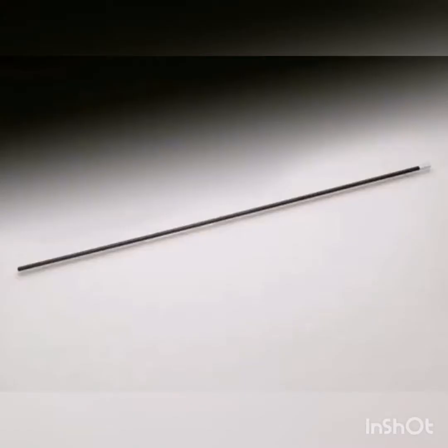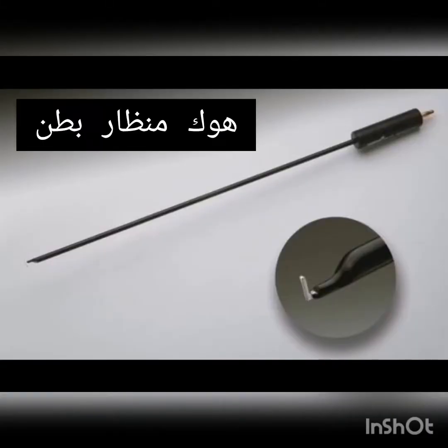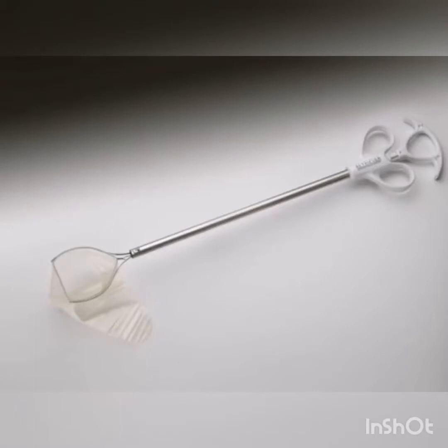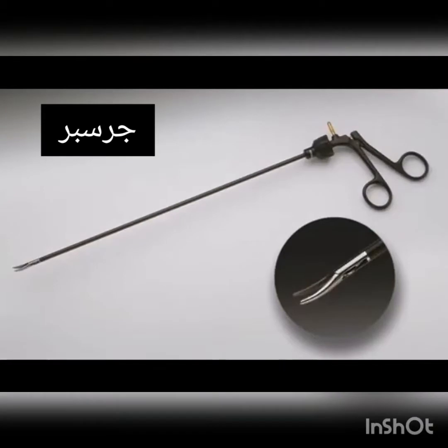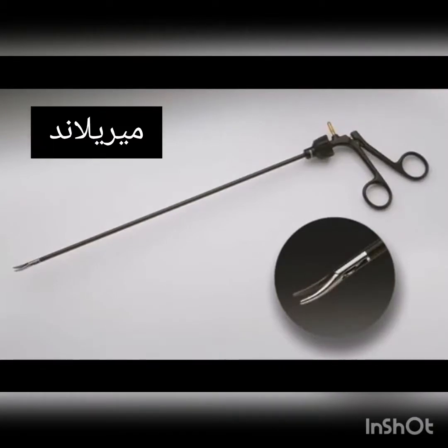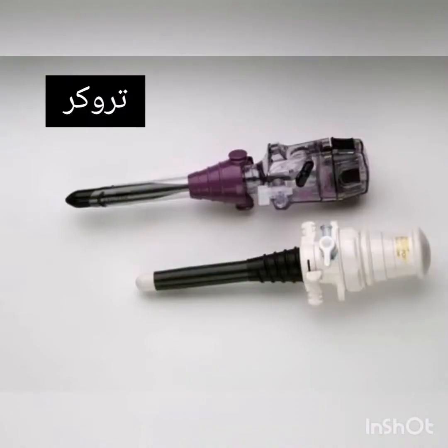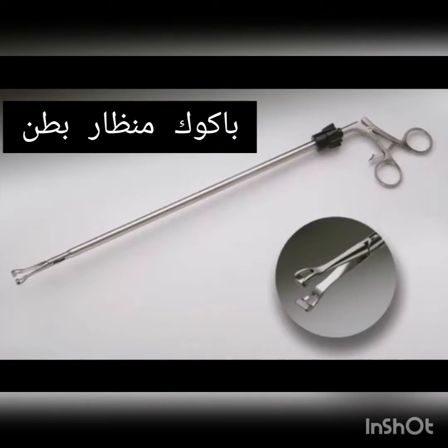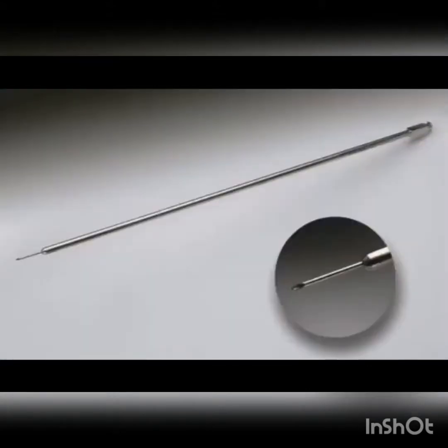Endokittner. L-Hook. J-Hook. Endokittner L-Hook. Blunt Dissector. Maryland Dissector. Endoscopic Scissors. Blunt Trocars. Endoscopic Babcock Forceps. Endoclip Applier. Endoscopic Aspirating Needle.